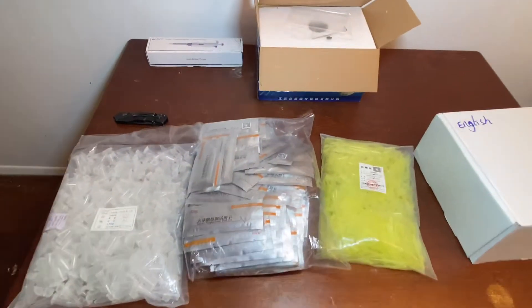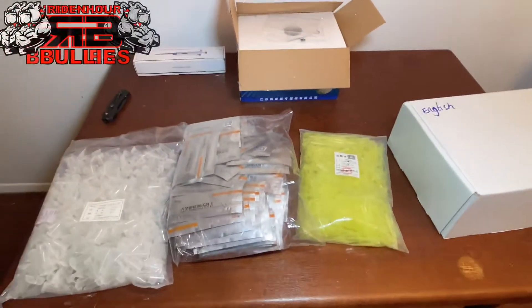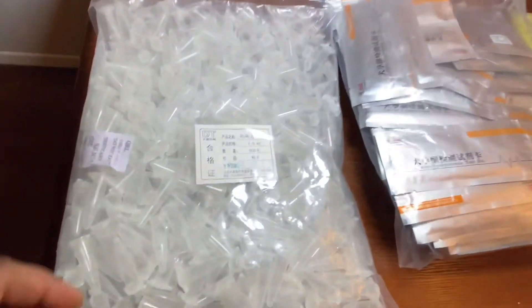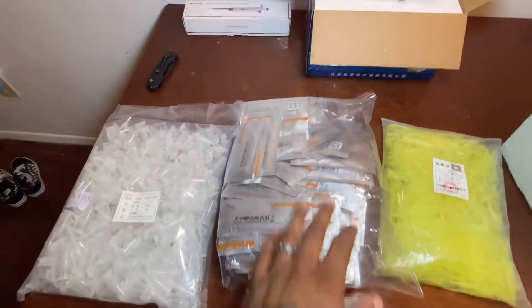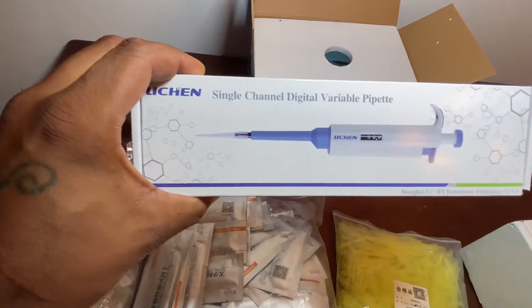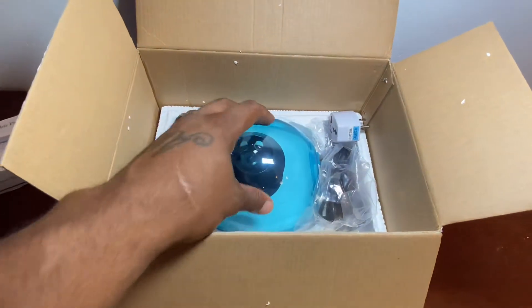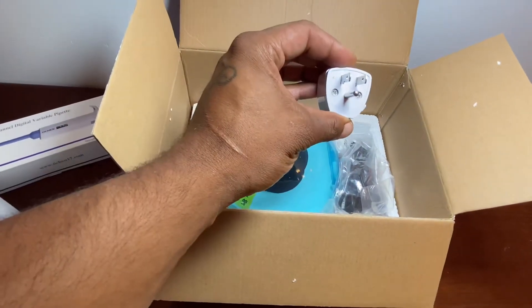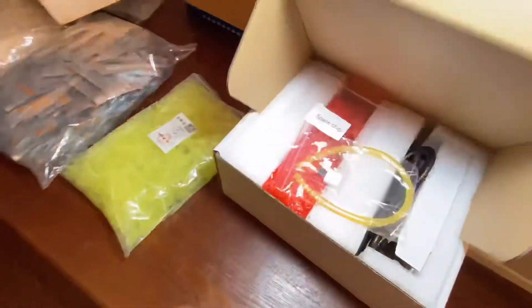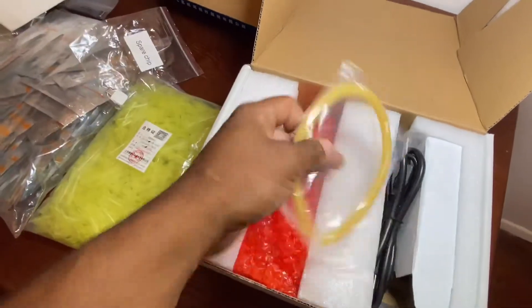It's official. Besides C-sections, I'm pretty much in-house everything now. Got 500 tubes for blood, 100 tests, a thousand pipette tips, an official pipette, a centrifuge adapter for the US, a spare chip, and a tourniquet.